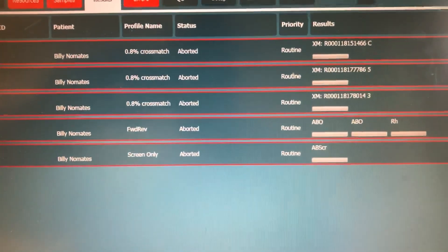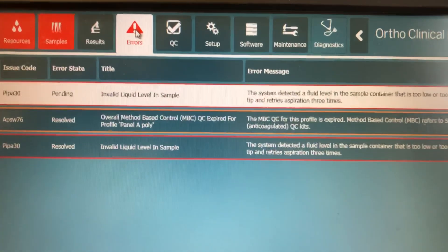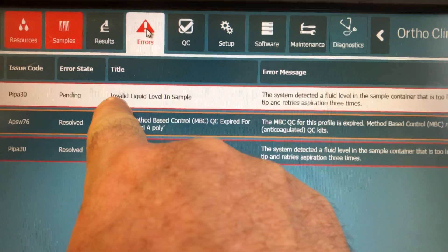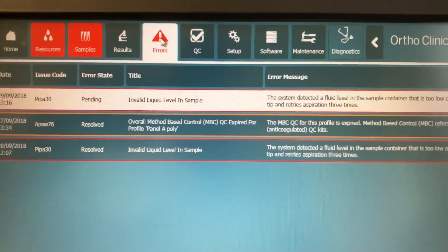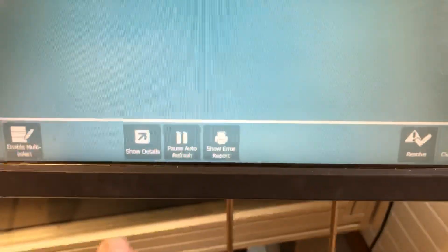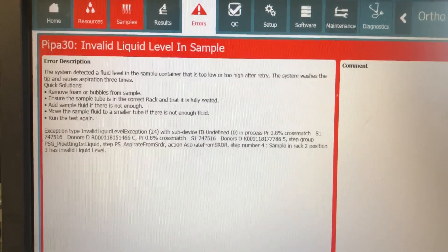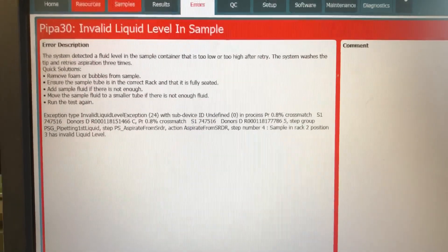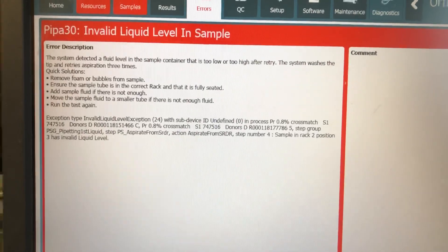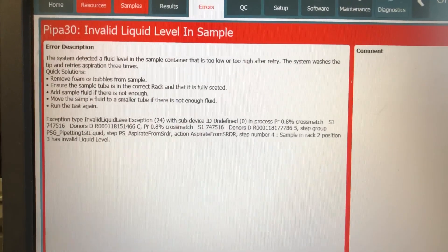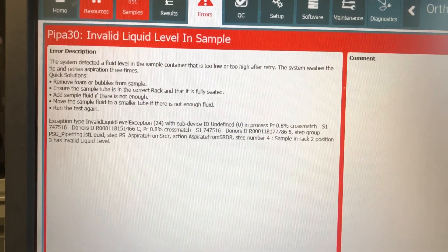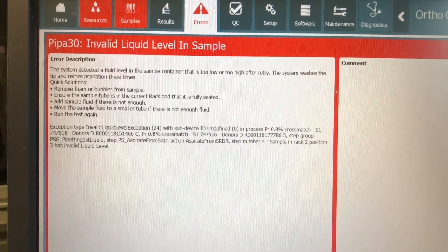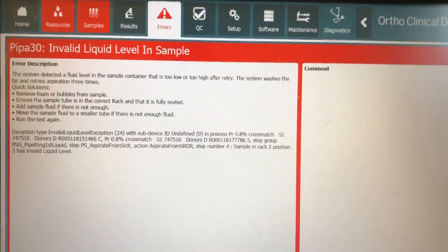I'd also just like to point out to people as well that use of the error button - okay, it will tell you what exactly is the problem. And in this situation it's an invalid liquid level in the sample. In this example the sample specimen is actually overfilled. So if I just click on show details it'll just pop up with the instructions and tells you what to do or how you rectify the situation. This really won't affect us. What we will do is we'll do the remedial work. For example, it says remove bubbles from the sample, ensure that the sample tube is in the correct rack, make sure that the sample level isn't too high, and maybe put the sample into a smaller tube if there isn't enough, and run the test again.